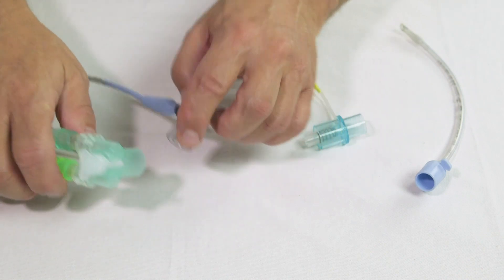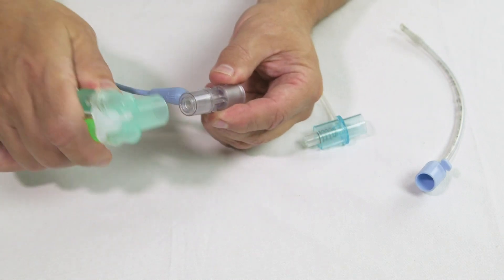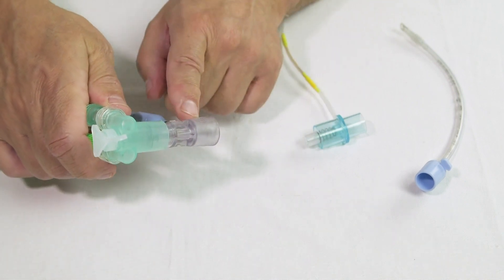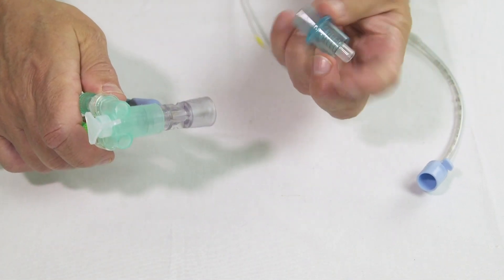Insert the sampling line connector into the patient circuit. This should be placed between the flow sensor and the ET tube.